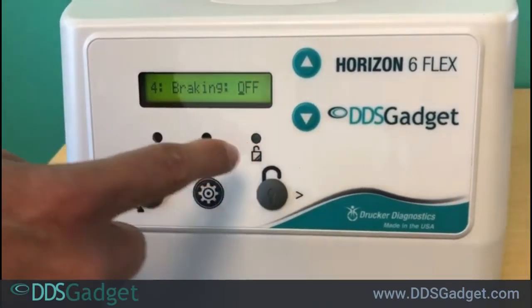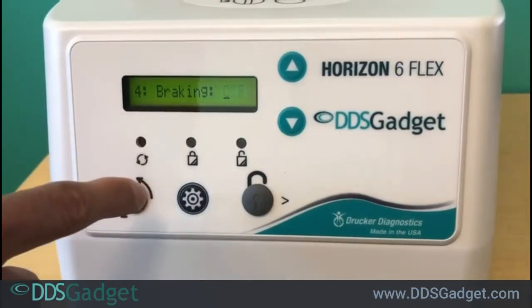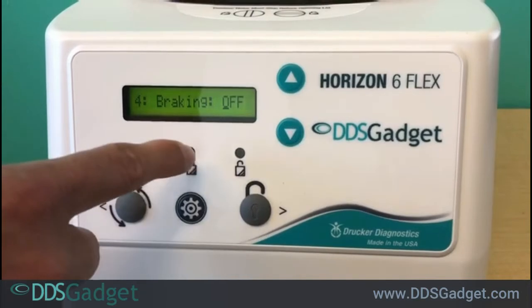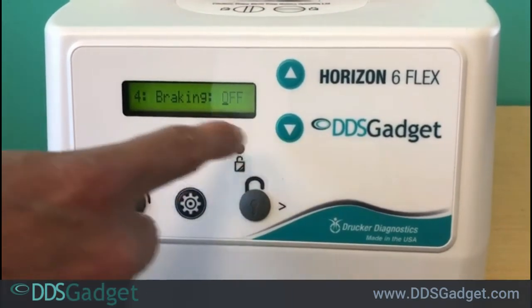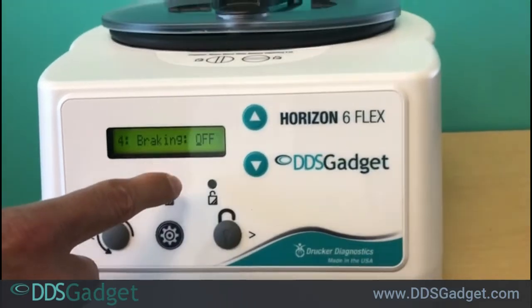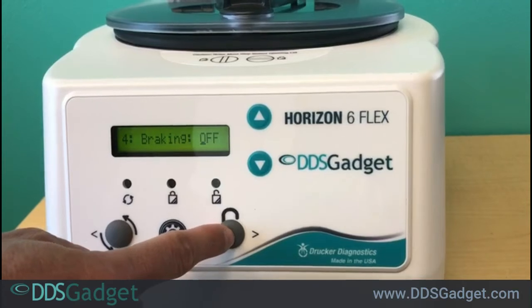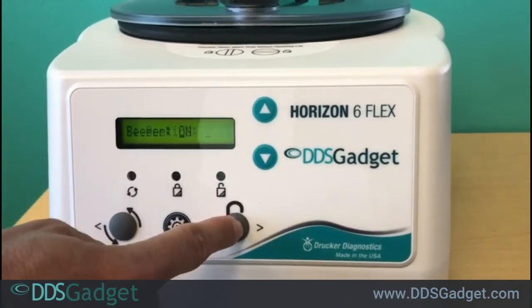The next setting is braking. You have different settings but it's best to leave braking off on the machine right now — that's what we recommend. Braking is just how quickly it brakes once the cycle is done. For dental applications it's best to leave braking off; the machine will cool down pretty quickly after the cycle is done and you just open it once it beeps. So we'll turn braking off.